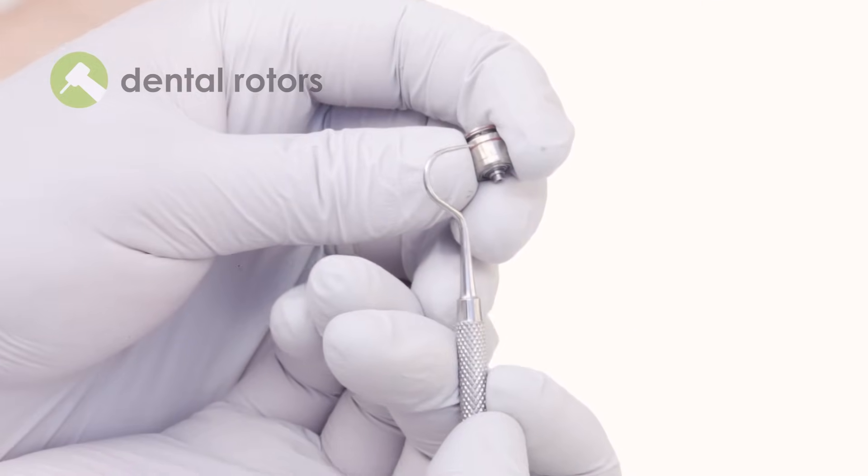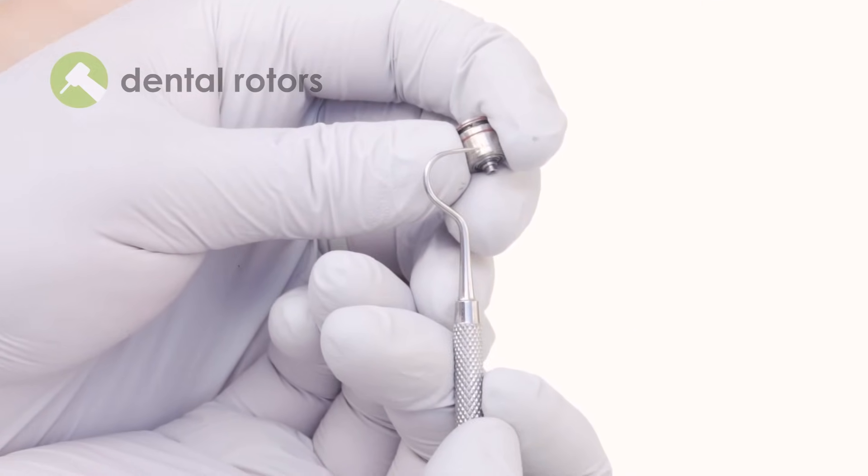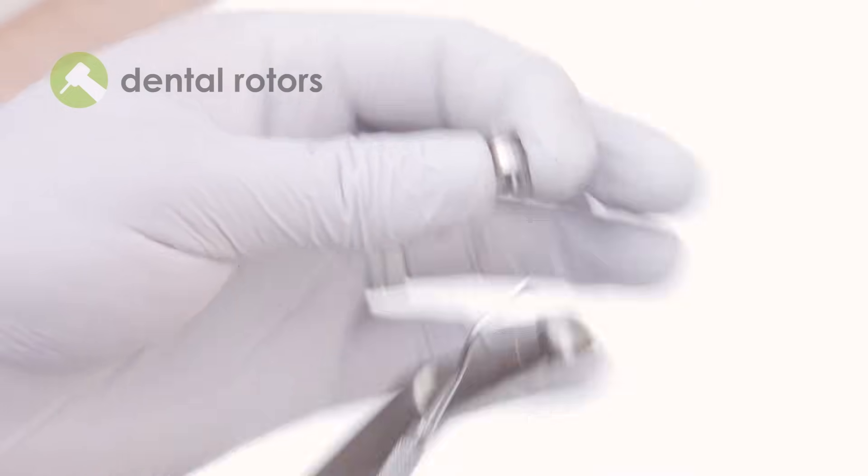Make sure to align the positioning pin or mark on the cartridge with one of the turbine head. This ensures proper installation.